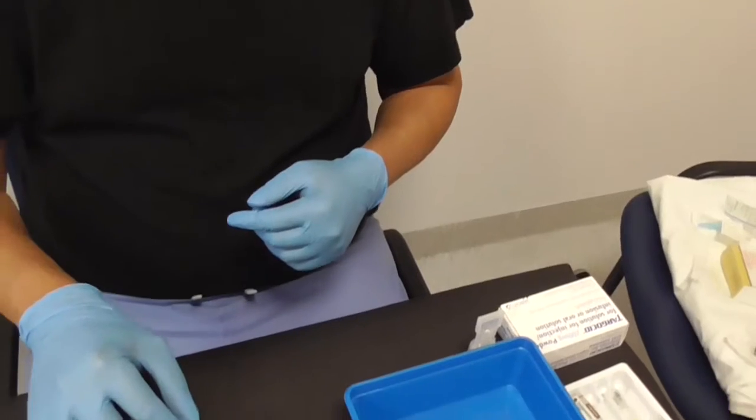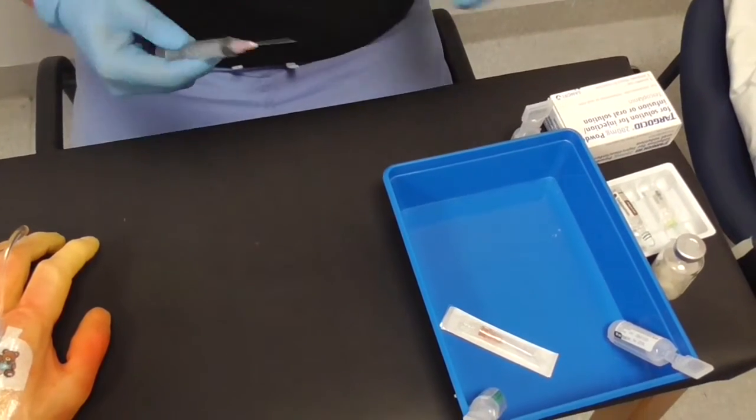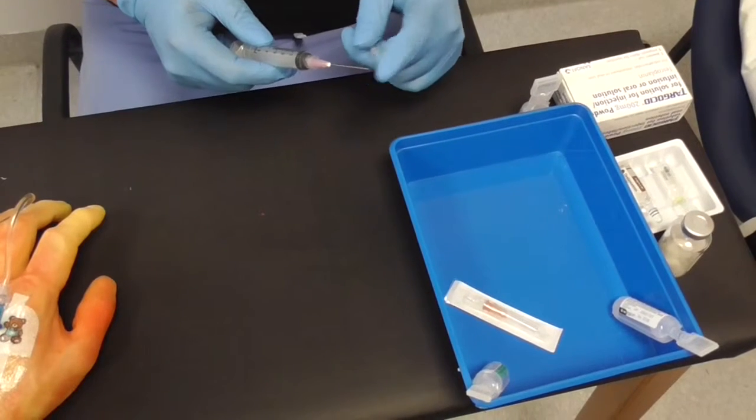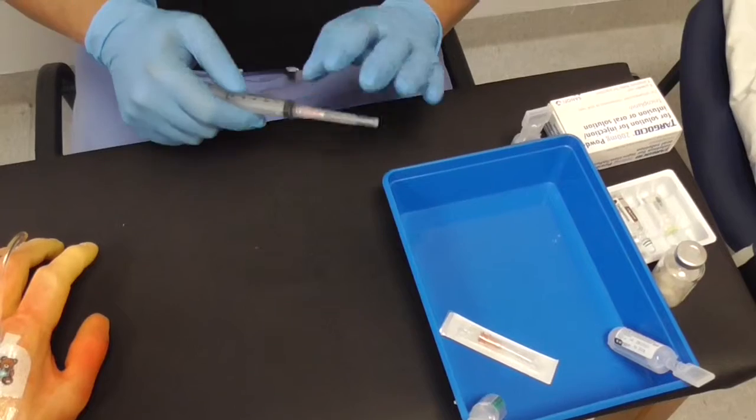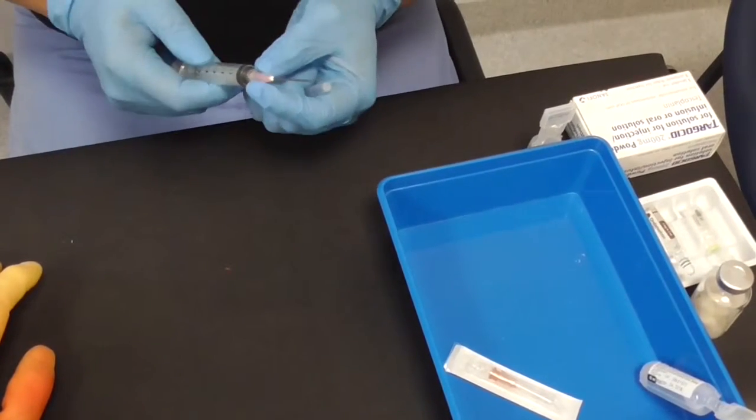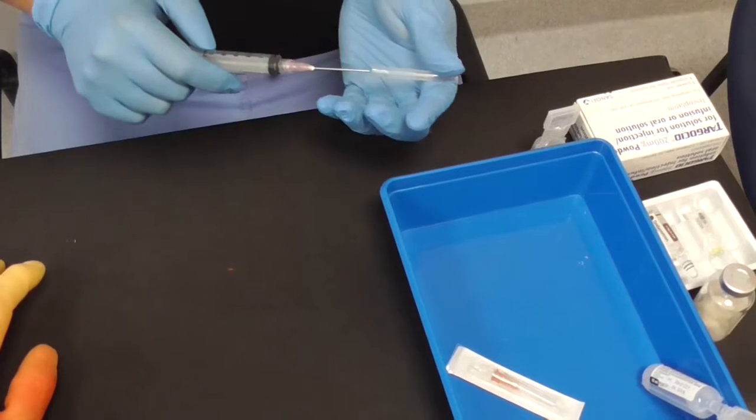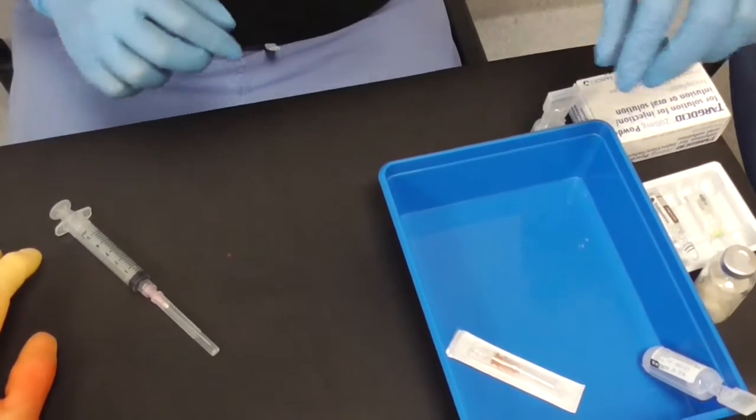So let's first look at the kit. We have the basic kit: a syringe with a needle. This is a drawing up needle and it's blunt tip, so it's got no sharp bit to it. But even so, when you finish with it, you don't resheathe like I've just shown. You undo it and put it into the sharps bin. I'm resheathing it just for demonstration purposes here.